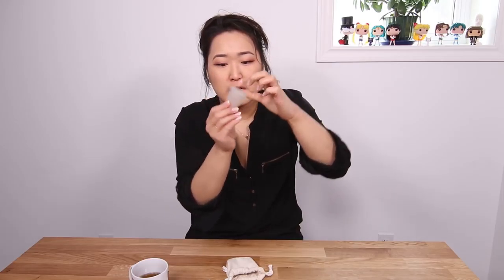The cup has an upper ring that creates the seal — it's a little more firm on top but still quite malleable. Underneath the ring there are four little holes, and this is how your body creates the seal — those holes get plugged up with fluid so it stays up there. But if it's too full, the liquid leaks out through those four holes. There are little lines on the inside — this much is about a tablespoon of liquid. On my first day or two I fill the cup up, but afterwards it's usually around half a tablespoon or less depending on how often I change it.